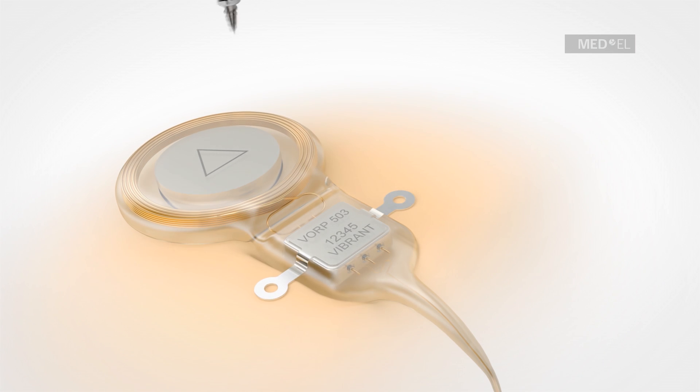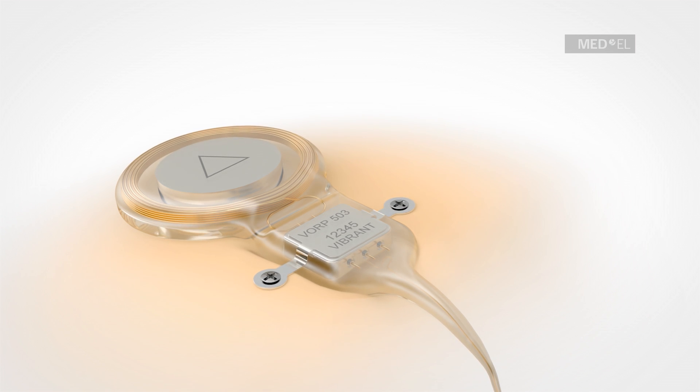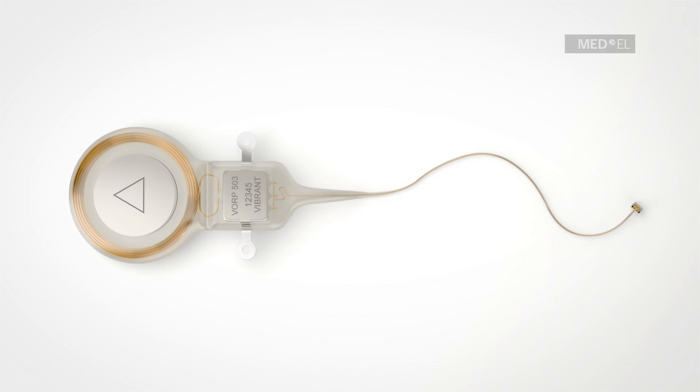Implant fixation is more efficient using two self-drilling screws. The conductor link length is shorter and the implant has a clip-free and orientation-free FMT.